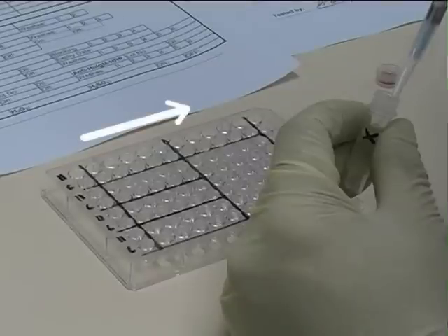Today we are using just two cells. One is homozygous for HPA1a and the other is homozygous for HPA1b. The donor platelets are in these wells across the plate.